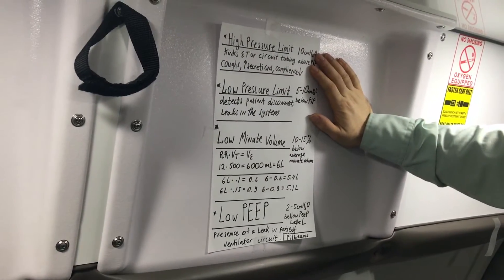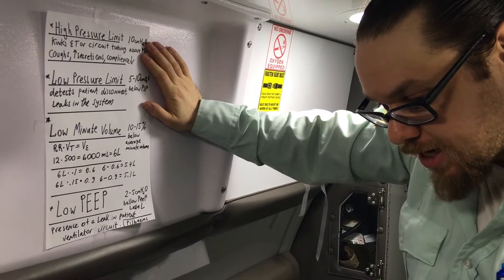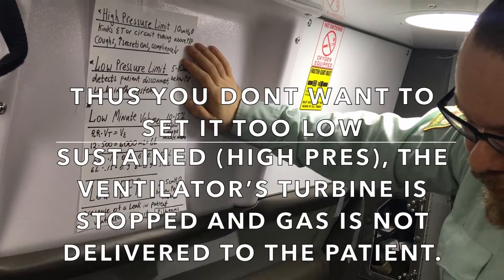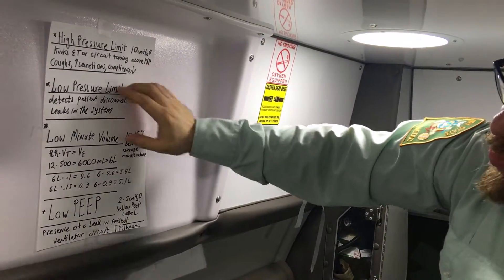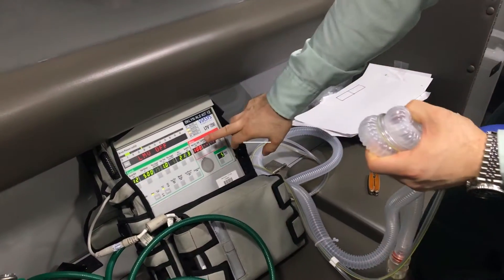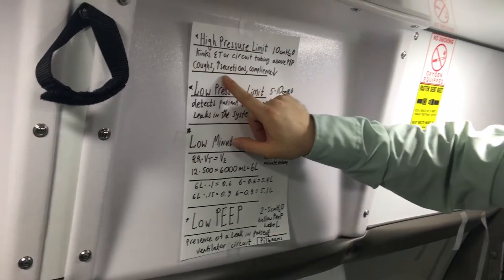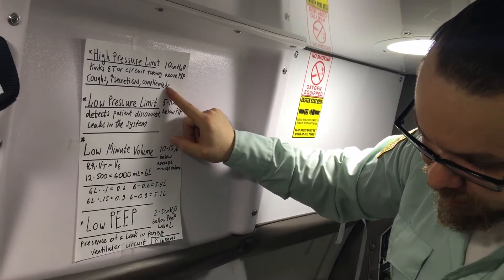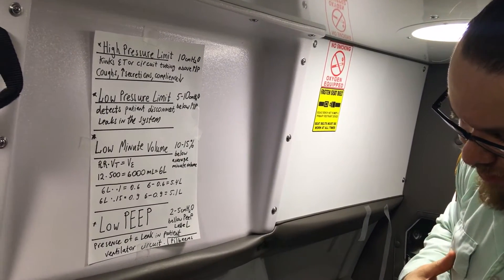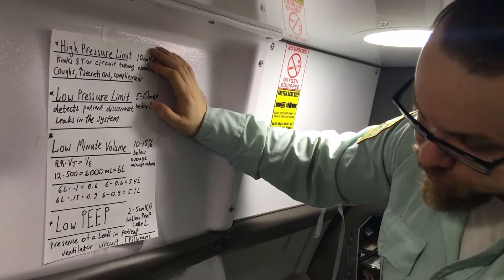So let me explain what this does. High pressure limit — as soon as the ventilator senses that this pressure is reached, it will tell the ventilator to stop flow of gas and cycle into exhalation. If the patient is constantly triggering this alarm, he's not being ventilated appropriately. What are some of the things that could cause a high pressure alarm? Kinks in the tracheal tube or circuit tube. If the patient coughs, if the patient makes more secretions, if his compliance of the lungs decreases — if it becomes more atelectatic, becomes more edematous — or patients who have burns, they become stiff in the chest, compliance reducing. All those things will cause high pressure to go up, and this is why we set this alarm to let us know to troubleshoot.